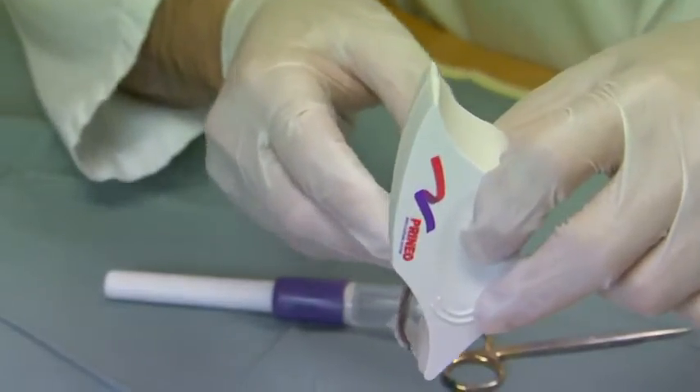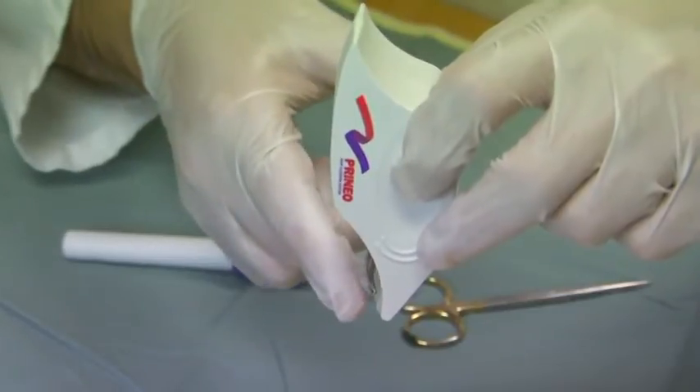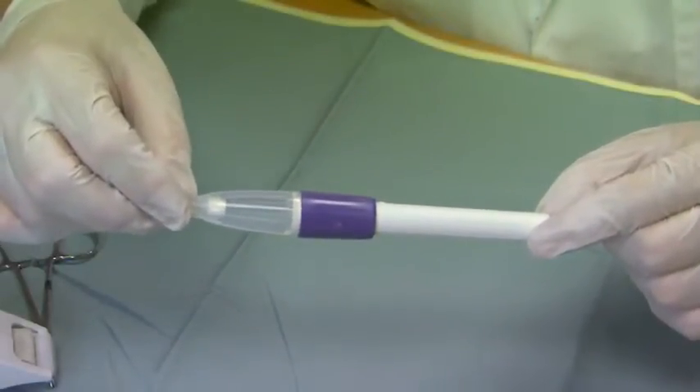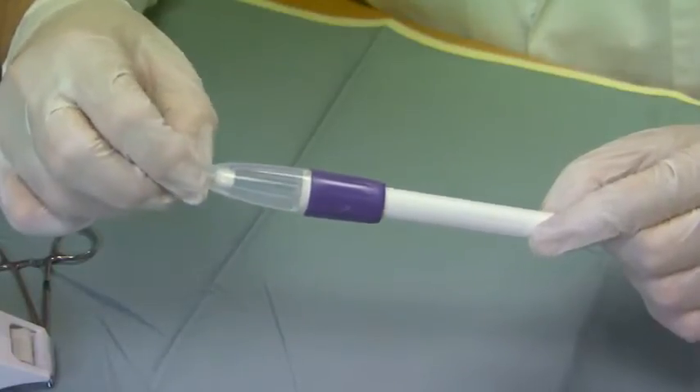It's important to keep the mesh on the underside, as the pressure-sensitive adhesive is on this aspect of the mesh. I'll put this aside for later use. This is the adhesive applicator, and inside is a vial of 2-octyl cyanoacrylate adhesive.